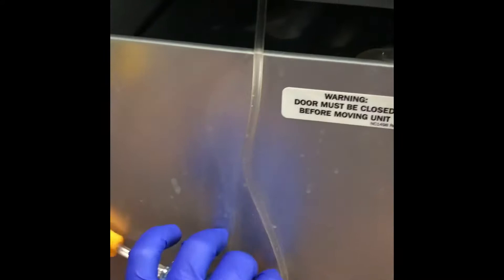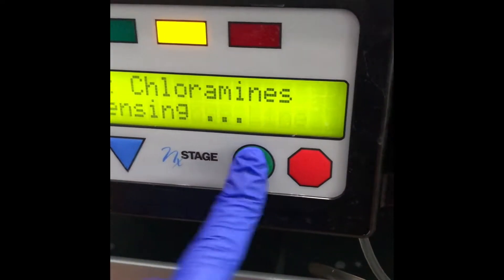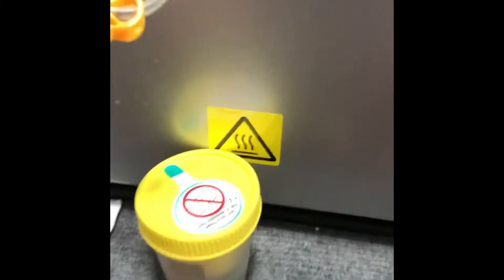What I will do is I will get a cup and the liquid will disperse. First I will press the green button, then I will unhook the orange lines from each other, clamp one side of the orange lines, and the disbursement takes about 30 seconds or so.